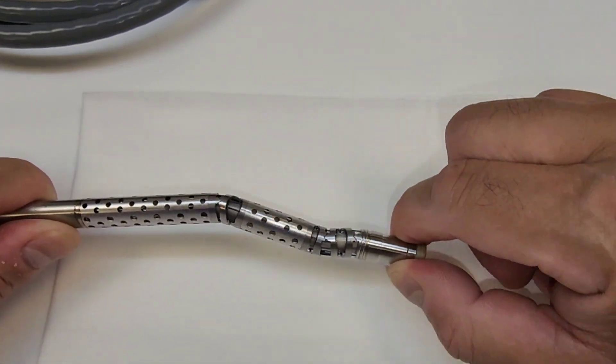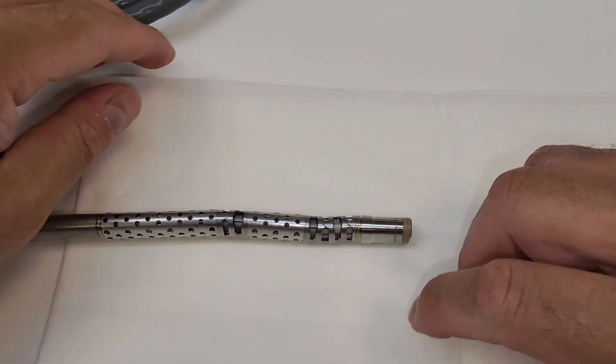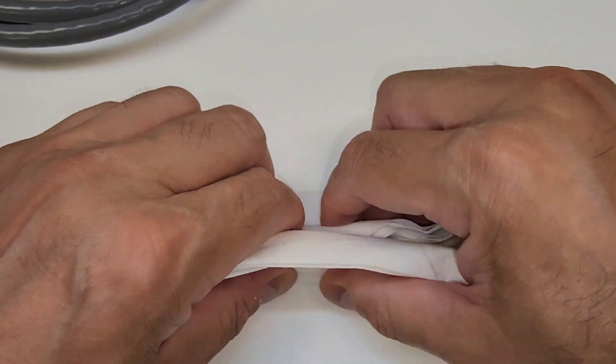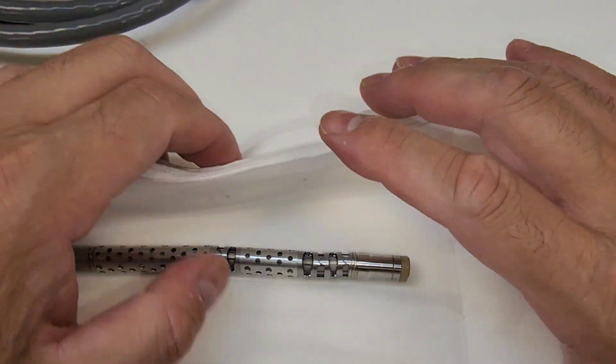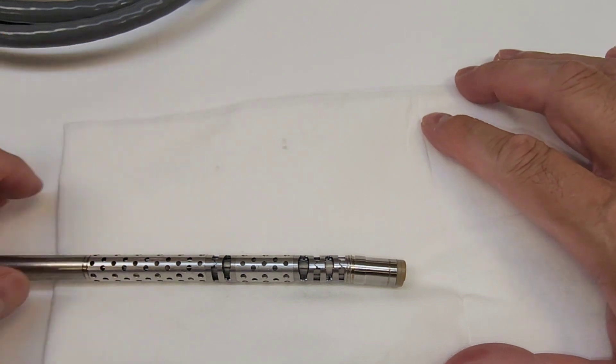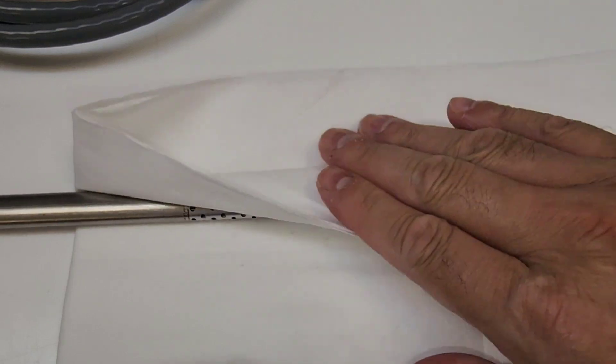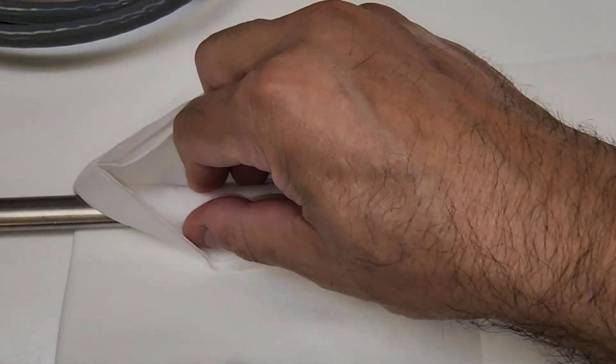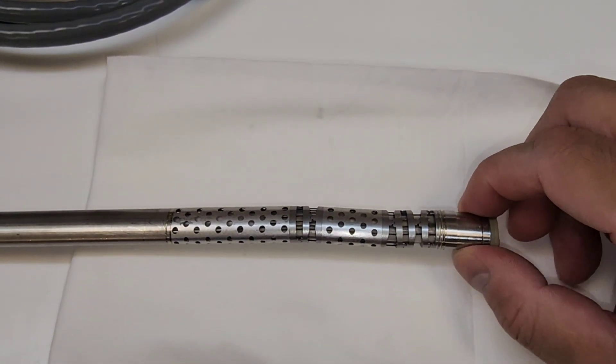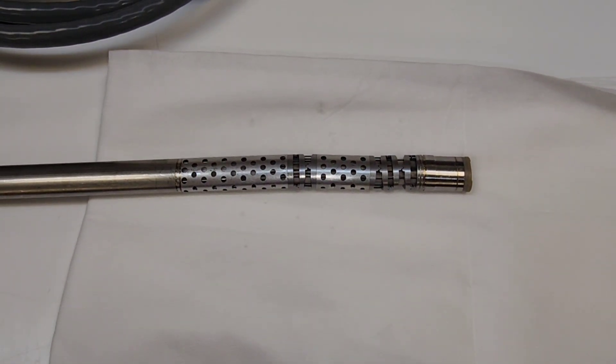Making sure that the lubrication penetrates all those surfaces. There's six points - joint, space, joint, space, joint, space. Lubricate those points, and once it's lubricated, blot off the excess. Do not rub the oil off because you don't want to remove all the oil. You just want to remove the oil that can surface or drip during the sterilization process and give you a false negative. Just place the absorbent towel on there and blot off. This is it guys. As always, stay true to yourselves, keep 100, continue educating yourself.